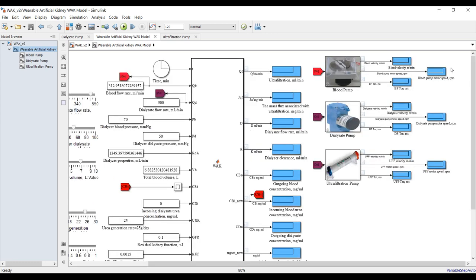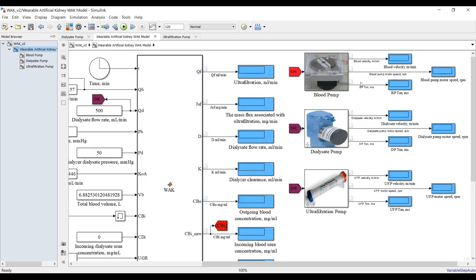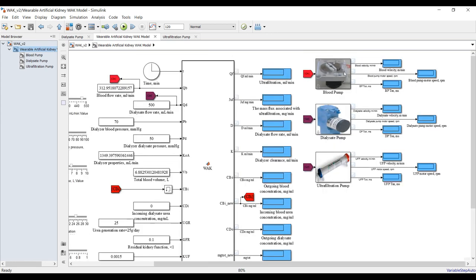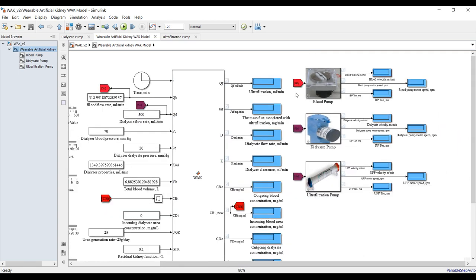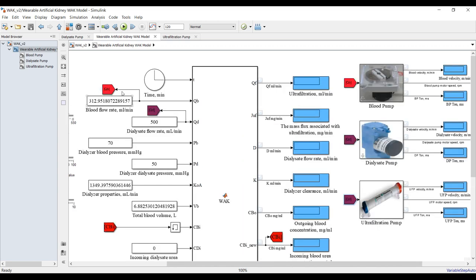As you can see here, we have a blood pump. The blood pump needs a stream from the blood flow rate — it needs just one input. The same applies for dialysis and for ultrafiltration. We need just a blood flow rate, which is in milliliters per minute.